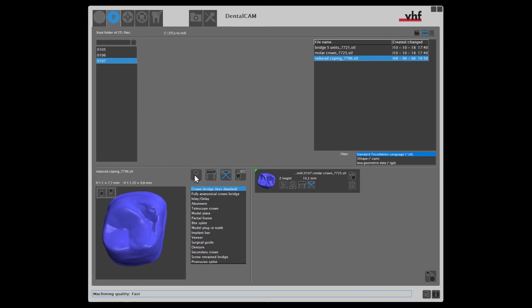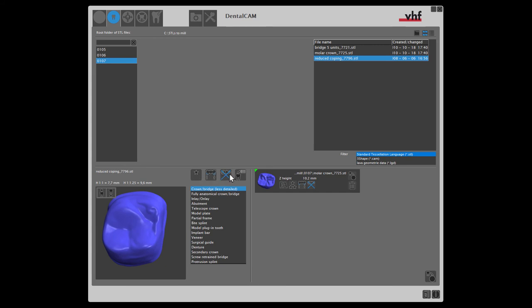The settings for the detection of cavities and drillings remain the same. Now we can add our second object to the import list.